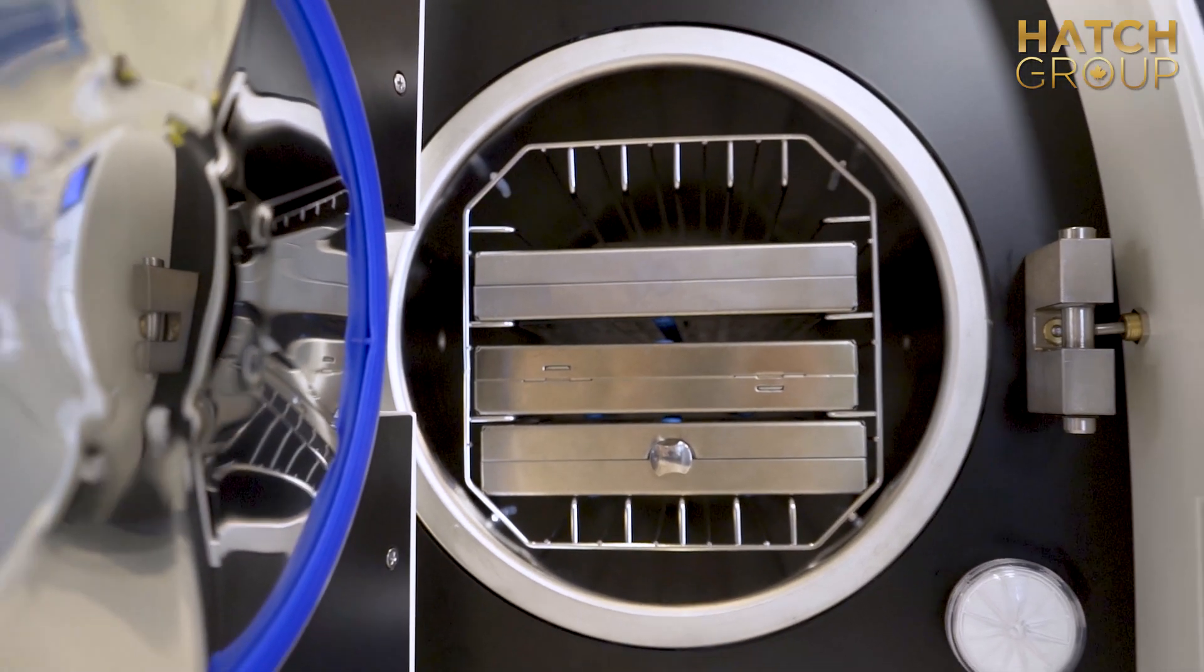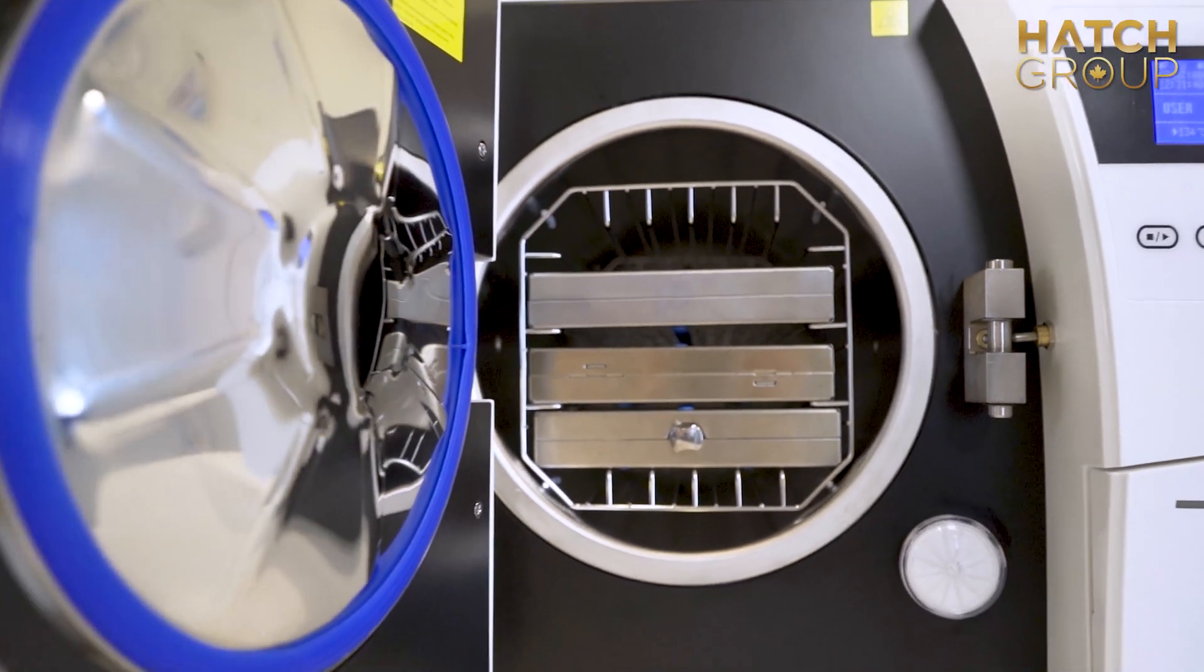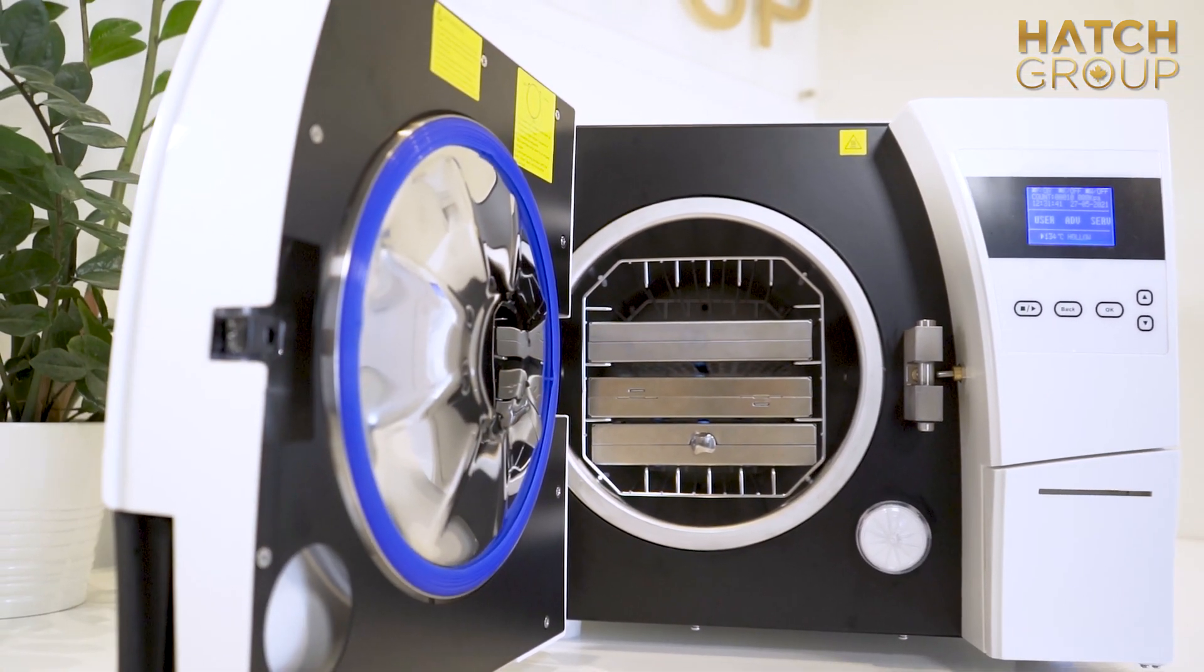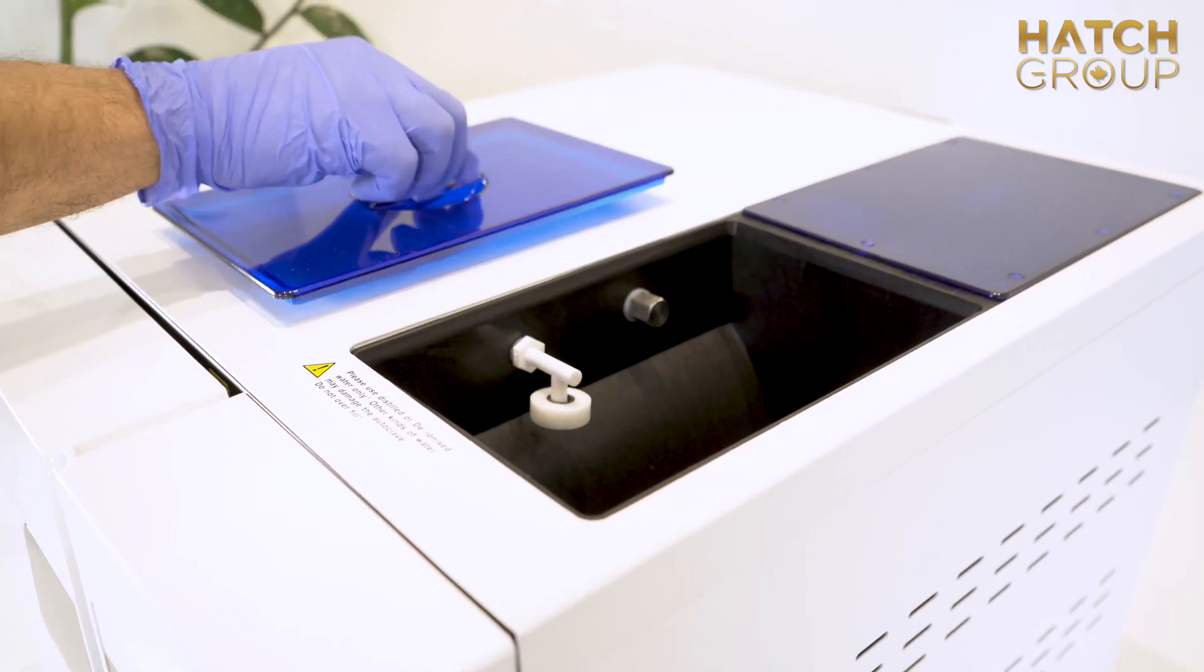The SmartClave is built with pulsating steam injection technology, making it one of the fastest and most efficient autoclaves in the industry. It has been engineered for minimal water consumption, with little maintenance required.